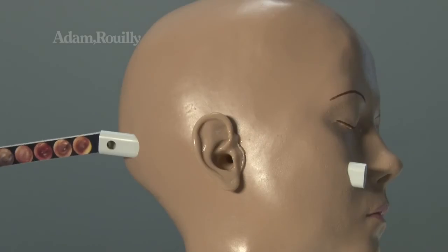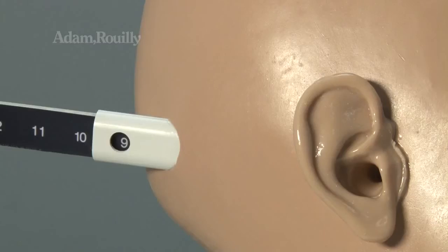To use the model, place the slide showing the 12 conditions into the head. Align the desired condition number with the indicator as shown.